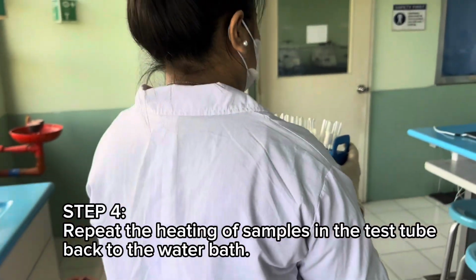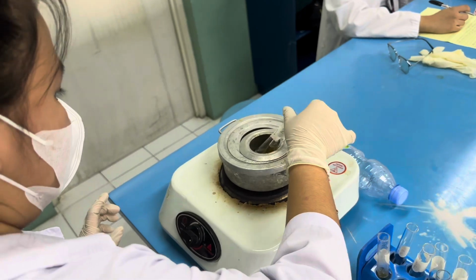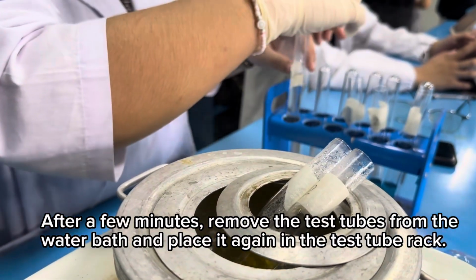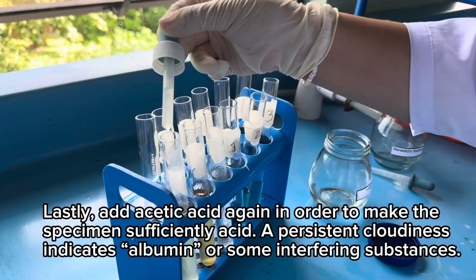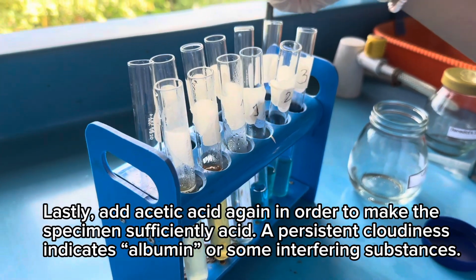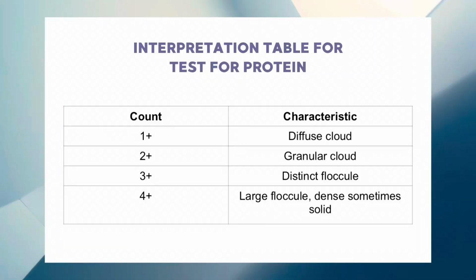Step 4. Repeat the heating of samples in the test tube back to the water bath. After a few minutes, remove the test tubes from the water bath and place it again in the test tube rack. Lastly, add acetic acid again in order to make the specimen sufficiently acid. A persistent cloudiness indicates albumin or some interfering substances. Interpretation table for test for protein.